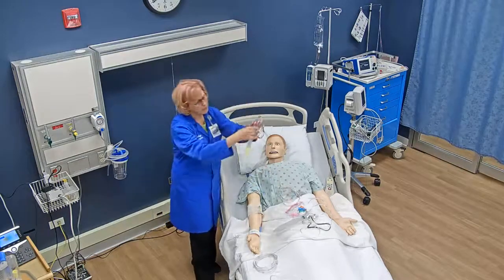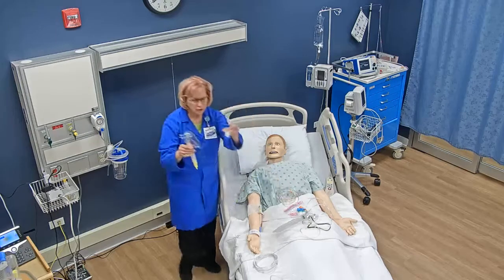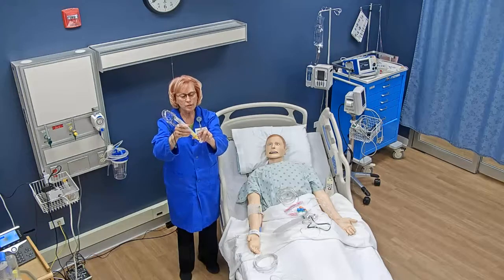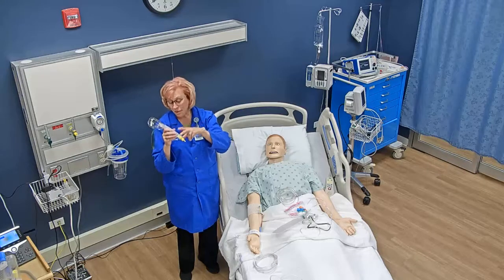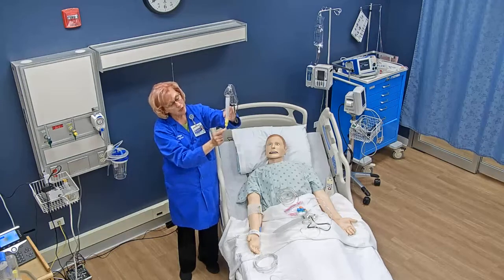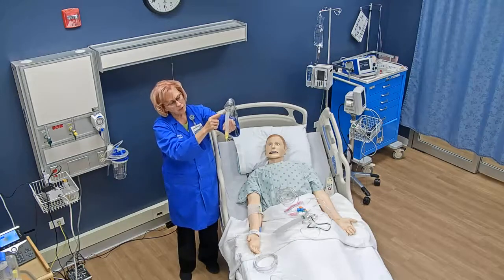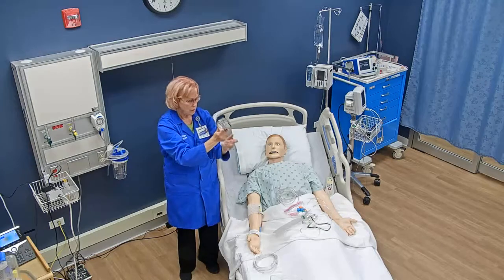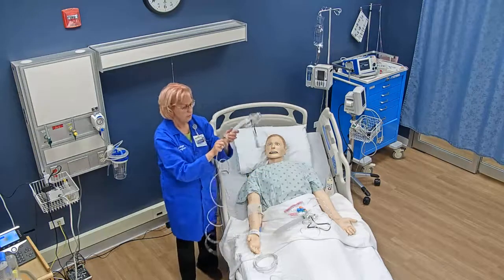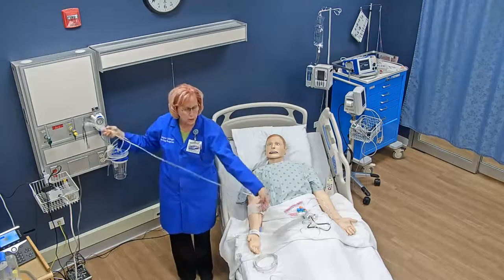I put the device together: I have the mask, the fat tubing, and then the adapter. There's also a little protector that goes on here to protect the vents so they stay open and free from obstructions like a blanket covering them. The way it works: oxygen comes through the center, the vents are open, it pulls in room air, mixes it together in the tubing, and delivers it to the patient. The adapter told me to set the flow meter at 4 liters per minute — it's different for each adapter, so you have to look at the adapter for instructions.